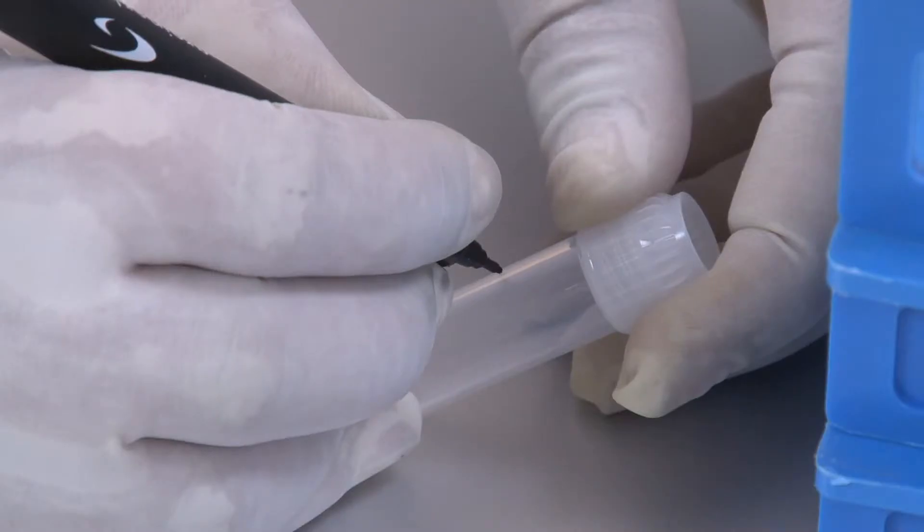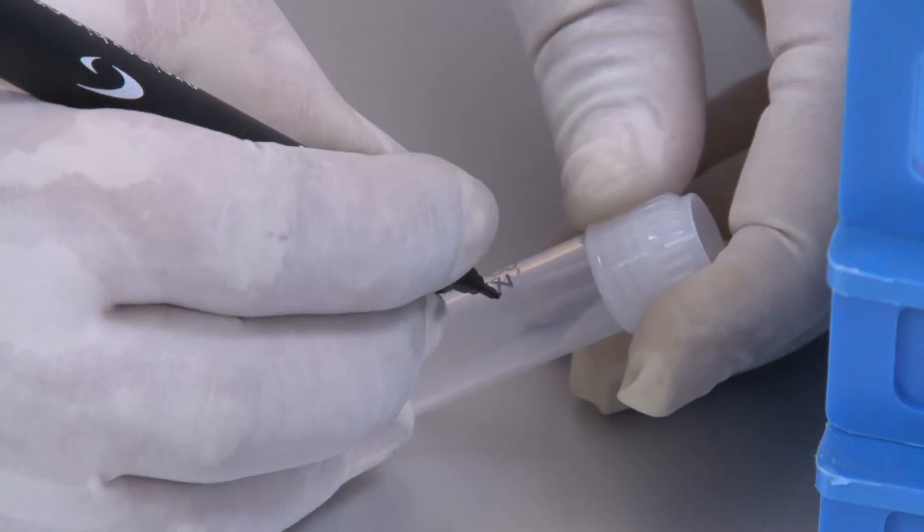Bring all reagents and seminal plasma to room temperature. Label the microtube with ID.